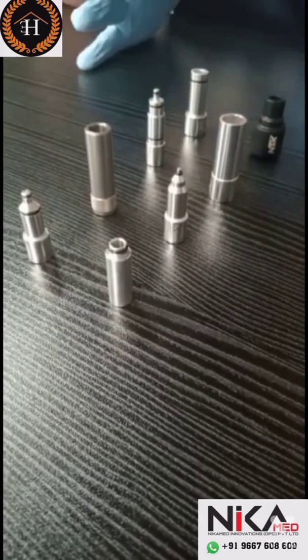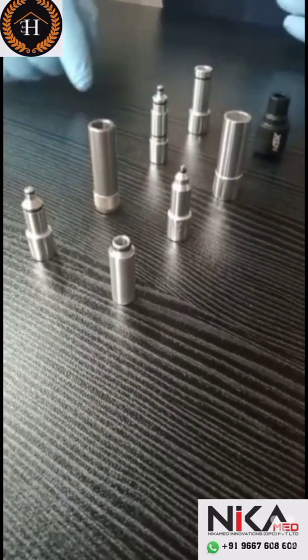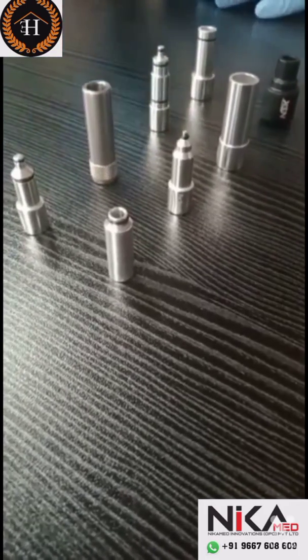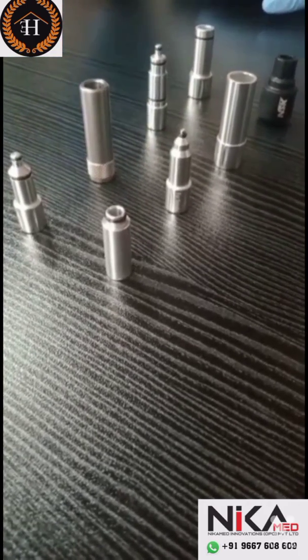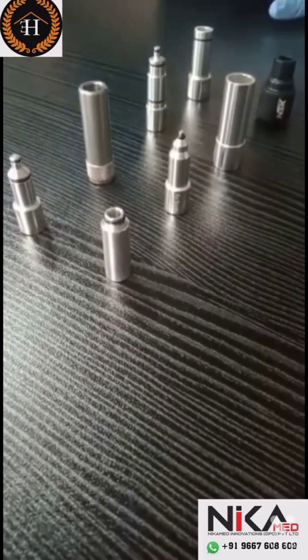We are going to explain different types of nozzles used for dental handpiece lubrication. These are some commonly used nozzles. Among these, three are main nozzles which should be available in all clinics.